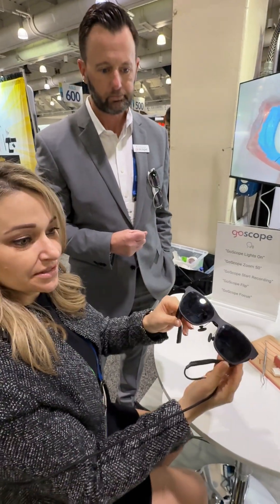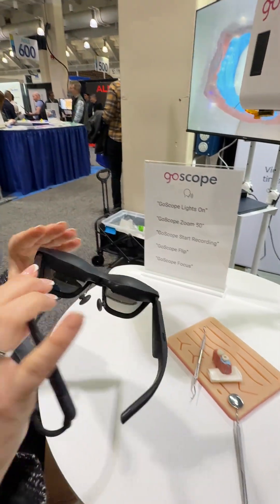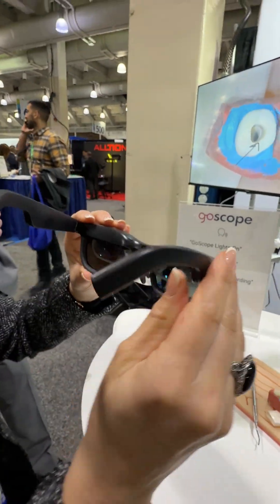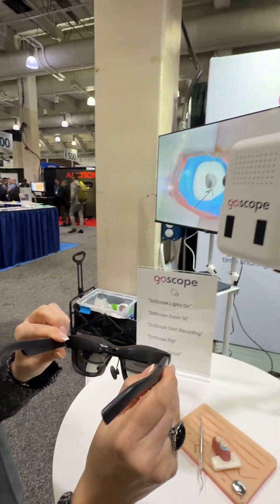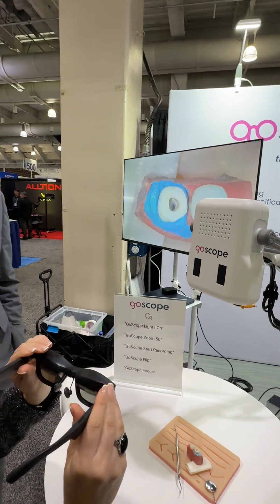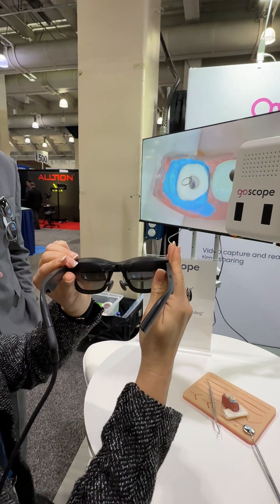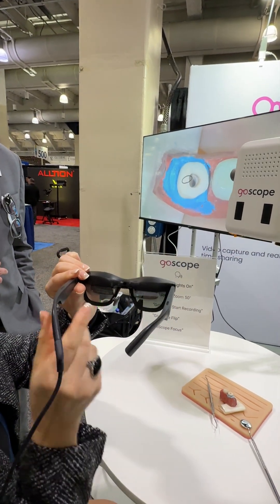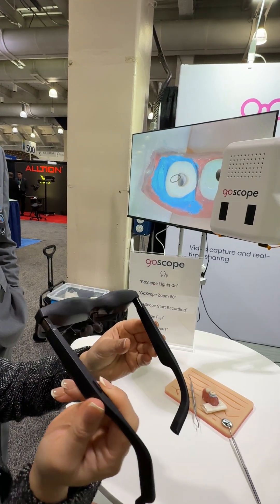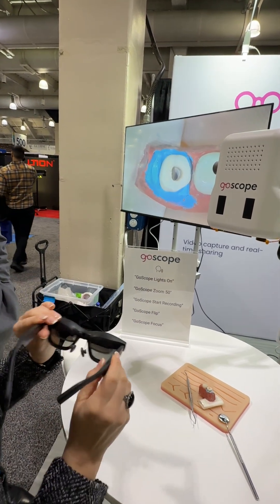Look at these things, they're so cool. Very simple — if you look on the screen, she just drew on it. This is great for students, for sure. And obviously it's great for endodontists — that's why they're here — but it's for anybody in dental.